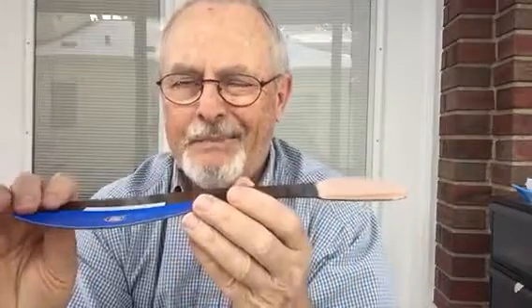The stiff flex is designed so it's flexible in the midfoot, so it doesn't restrict his ankle motion or slow him down. It doesn't pop out of his shoe. Unlike most of these carbon fiber inserts, they're just stiff — the whole thing is stiff.